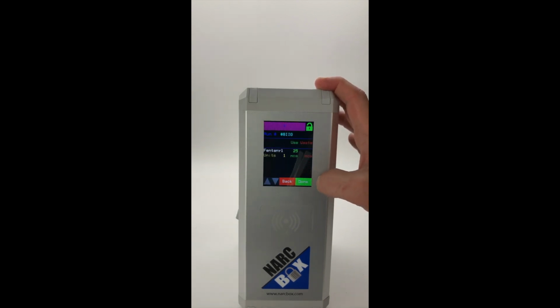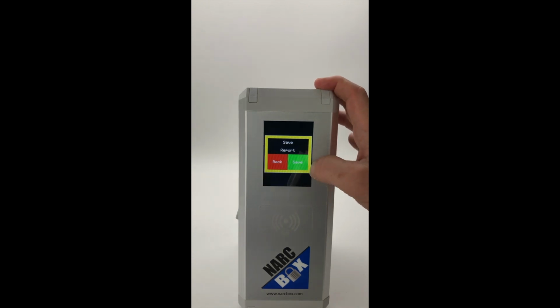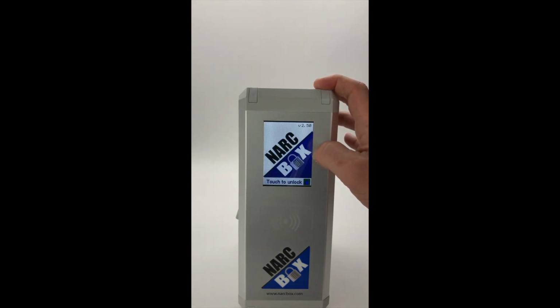Now when we move on to the next screen, this is kind of a summary type screen. So it's going to tell me run number hashtag 8IIG. The only drugs that show up, it looks like we've used 25 mics of fentanyl. That's only 1 unit, and we've wasted none. I'm going to click done, and it's going to say save report. The answer is yes. That means we've now done this completely. Report's been saved. Finally, the door locks, and we go back to the home screen, meaning that we're completely finished with that transaction. Thanks a bunch.